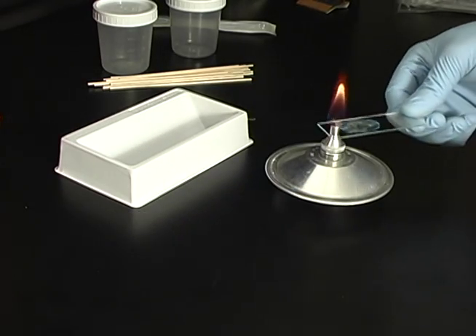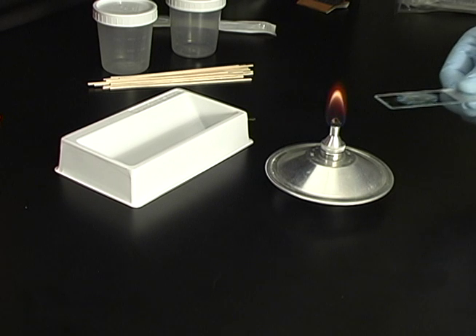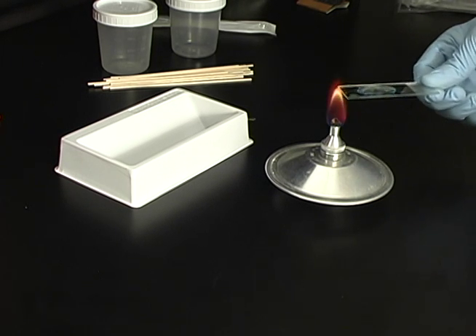If using a burner, pass the slide through the flame three to four times, being careful not to char the bottom of the slide.